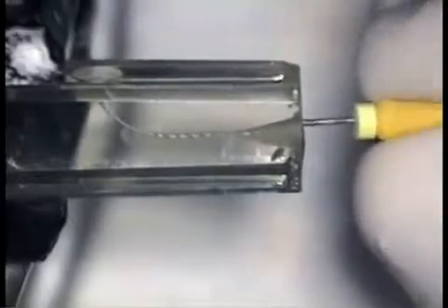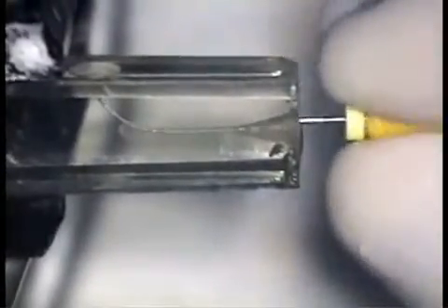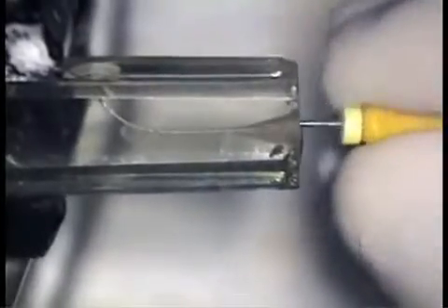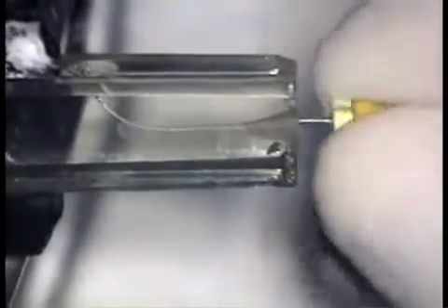Full 360-degree arcs of rotation are not our goal, but we will take them if they come with minimal resistance. To purposely increase the amount of torsional and apical force to attain 360-degree arcs of rotation leaves the instrument vulnerable to distortion and breakage, and the canal increasingly vulnerable to ledging, elbowing, and apical transportation.